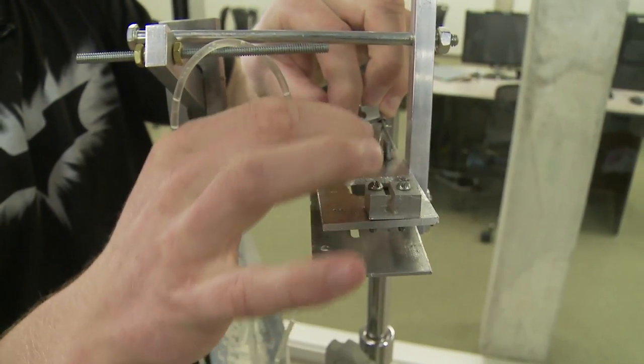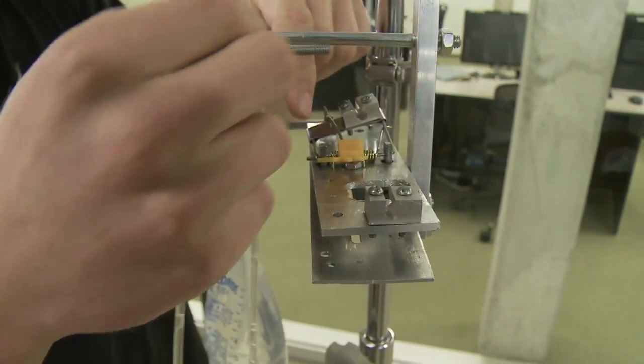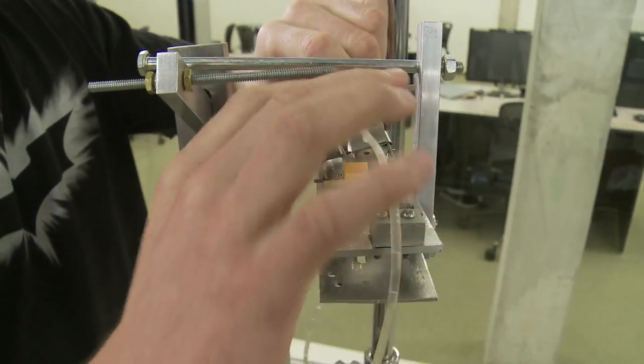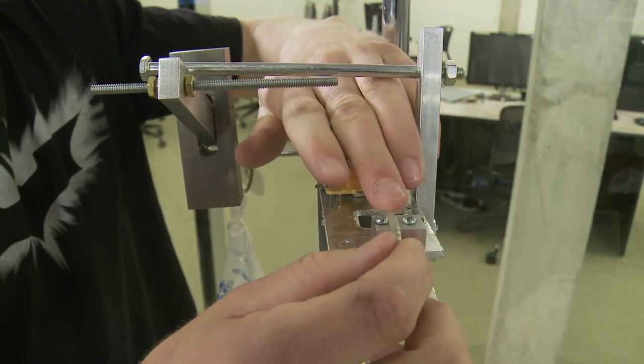Now they set the clamping mechanism just like they would a mousetrap and press the IV tubing into these tube holders. They can now start fluid flow and walk away.